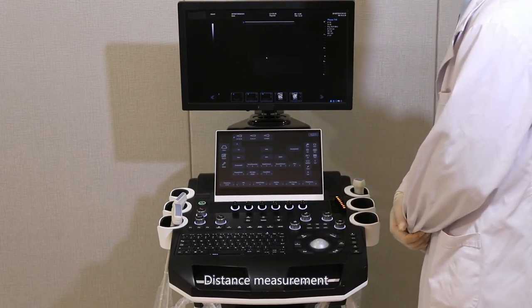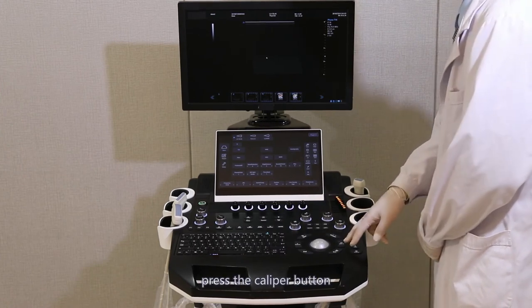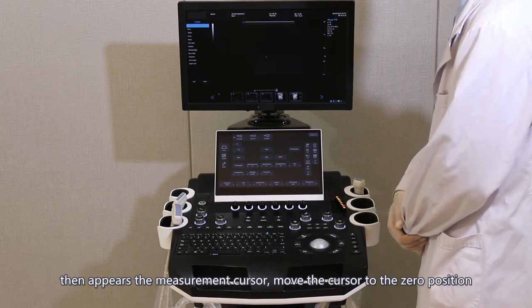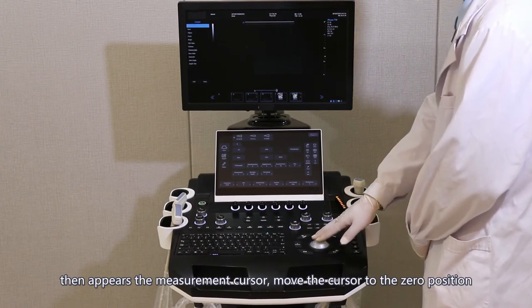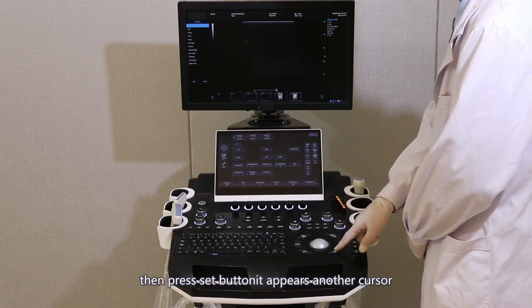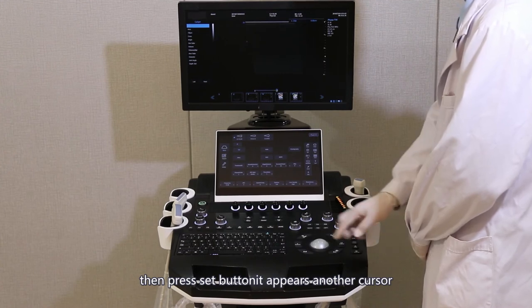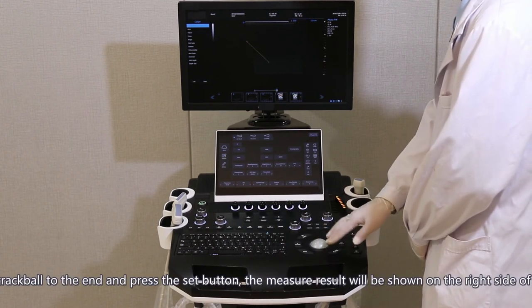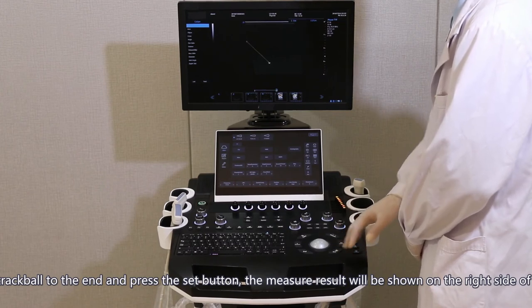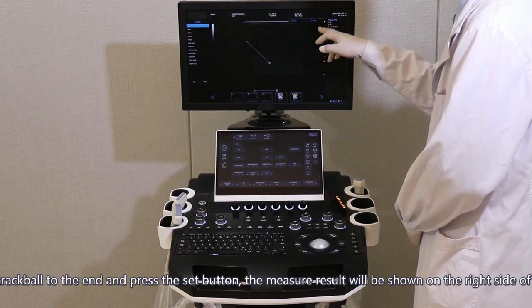Distance measurement: press the caliper button; the measurement cursor appears. Move the cursor to the zero position and press the SET button. Another cursor appears — move the trackball to the end and press the SET button. The measurement result will be shown on the right side of the screen.